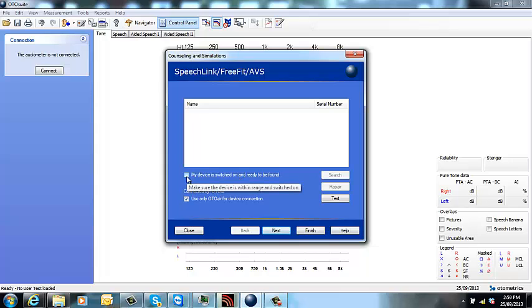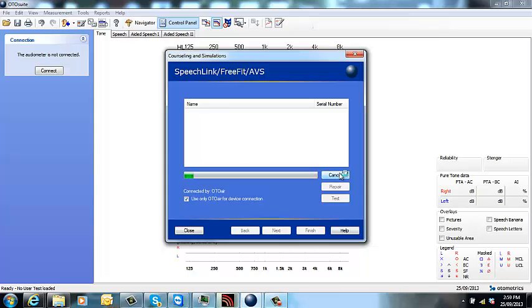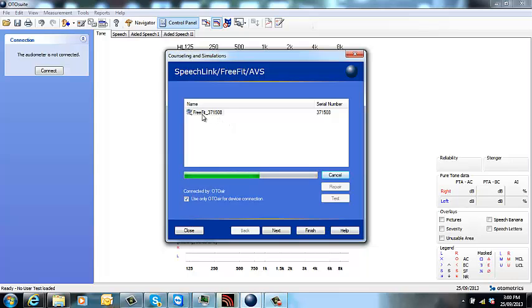When you've taken it off charge, just say my device has switched on and ready to be found. Click search. You should see the Bluetooth kicking on your device so the light should go from green to flashing blue. Once it's found, the serial number will pop up there.